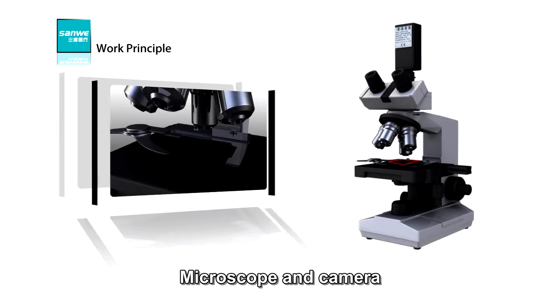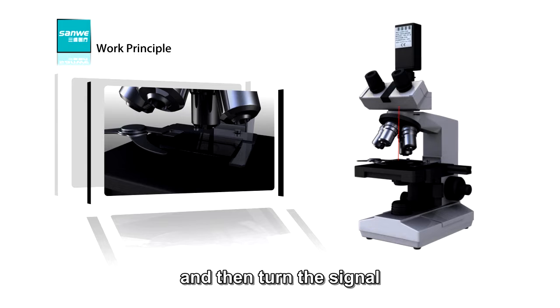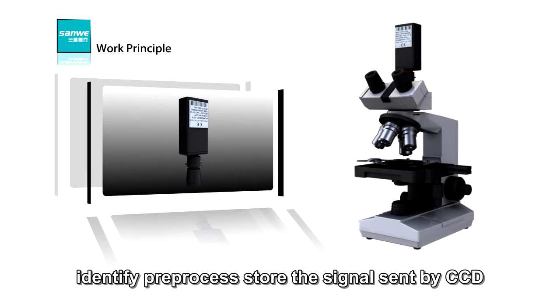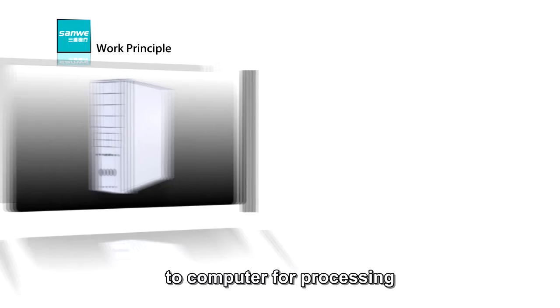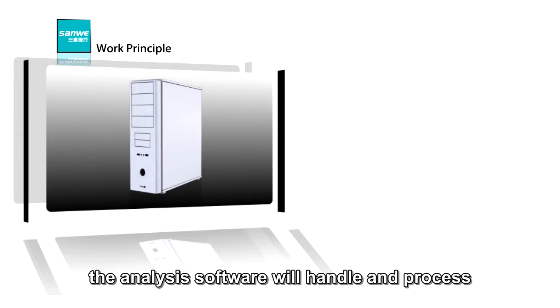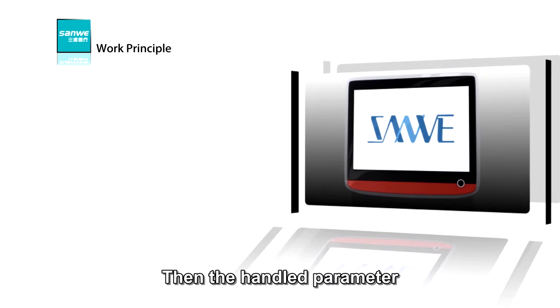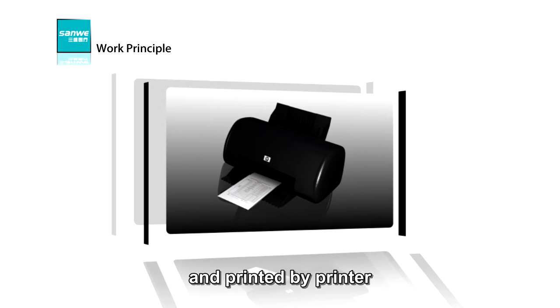Microscope and camera: enlarge the detected sample signal by microscope and then turn the signal into a television signal with CCD. The image acquisition can capture, identify, pre-process, and store the signal sent by CCD, and furthermore send the mature signal to the computer for processing. The analysis software will handle and process the pre-processing signal after being captured. Then the handled parameters will be displayed on the screen and printed by the printer.